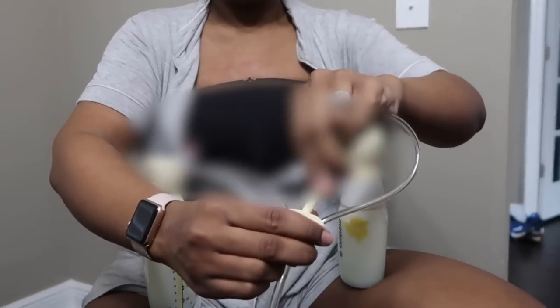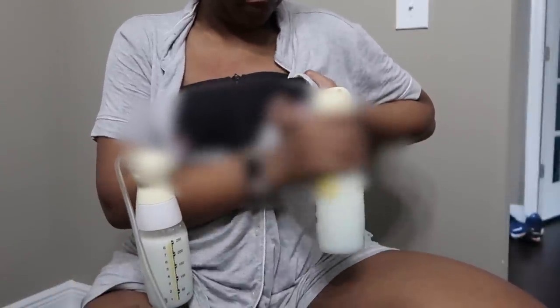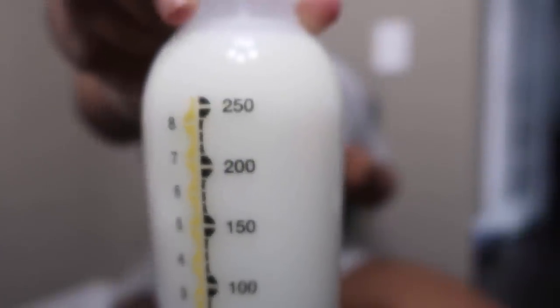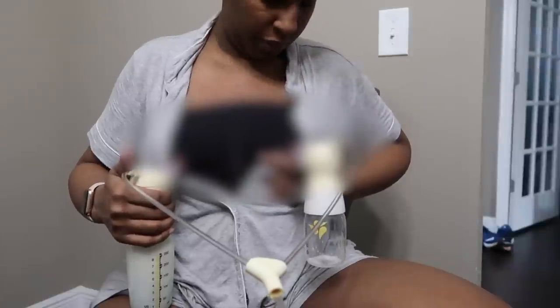Now I've finally reached the switchover phase for my left breast — this is my super boob, it produces the most milk. I detach myself carefully because although that bottle is filled up, I still have milk trying to come out. I grab the little bottle, tilt it over to release some milk, then hook it onto my breast. As you can see, the bottle is filling up quite quickly. I get about two or three additional ounces of milk out of that breast, then I start focusing back on my right breast.